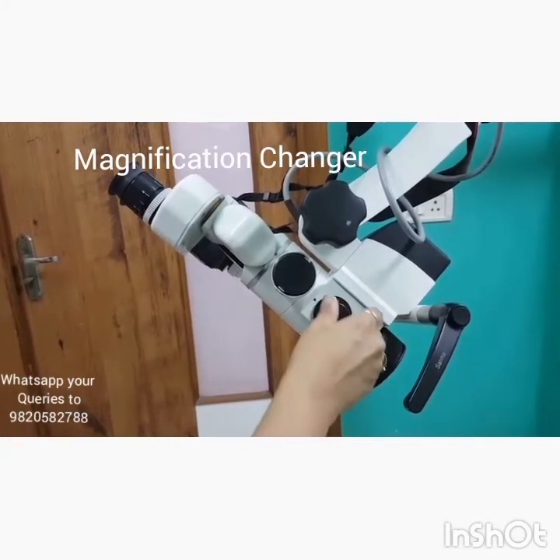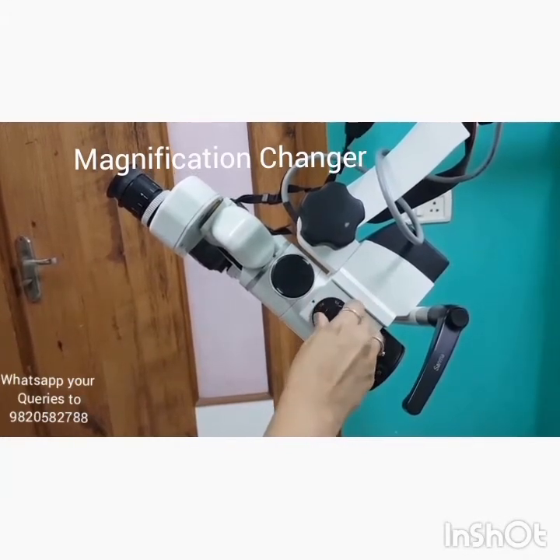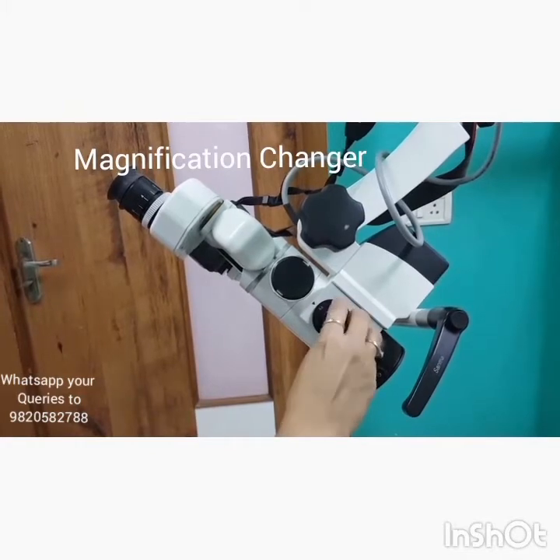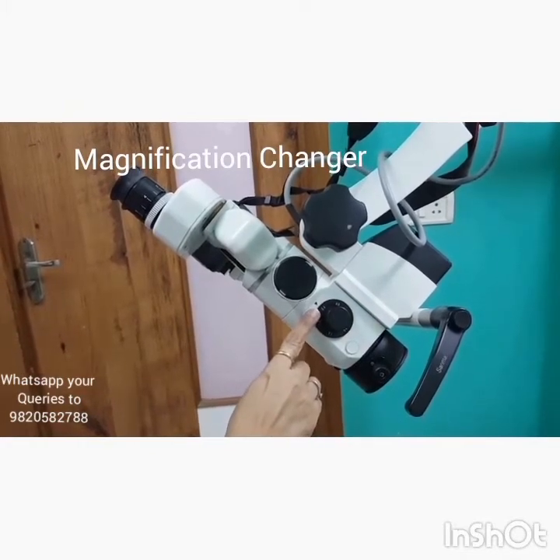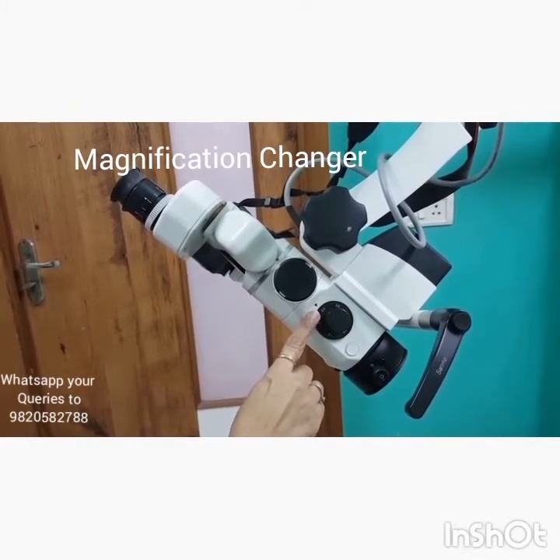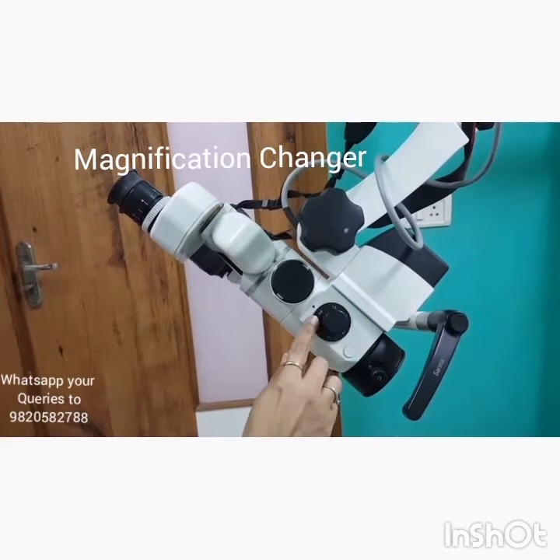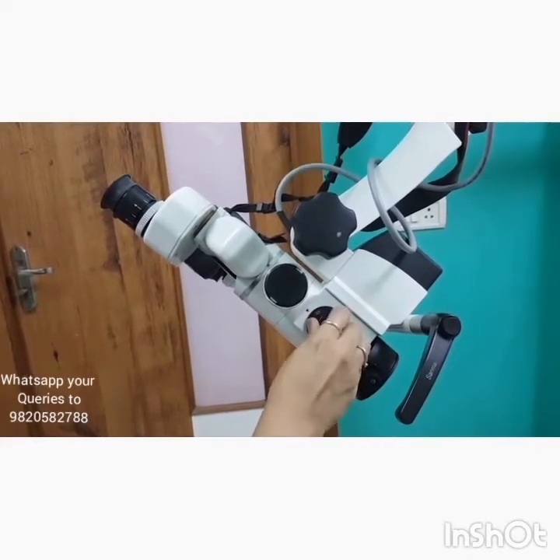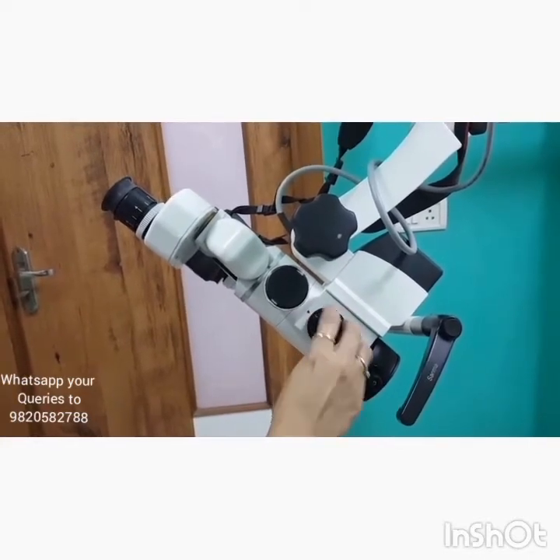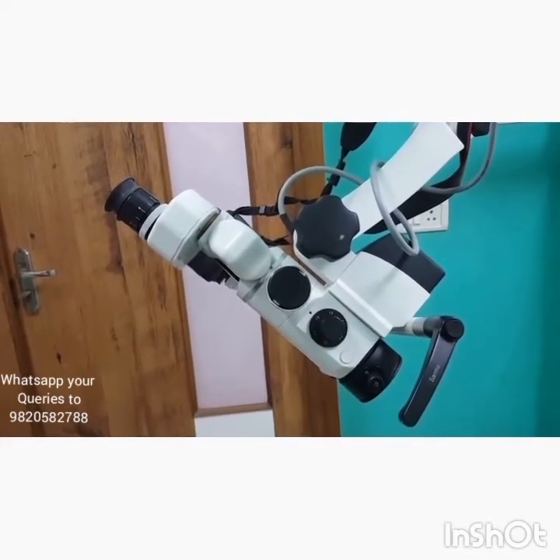Another important component in the microscope head is the magnification changer, which helps in varying the level of magnification. As you can clearly see, it can be set to 0.4, 0.6, 1.0, 1.6, 2.5, and so on.